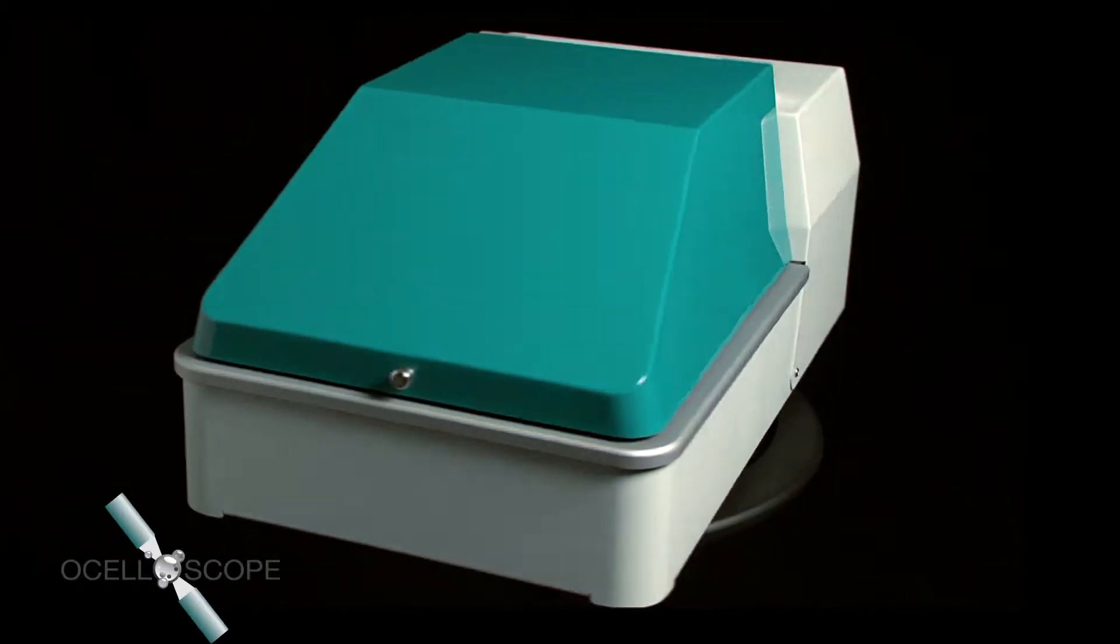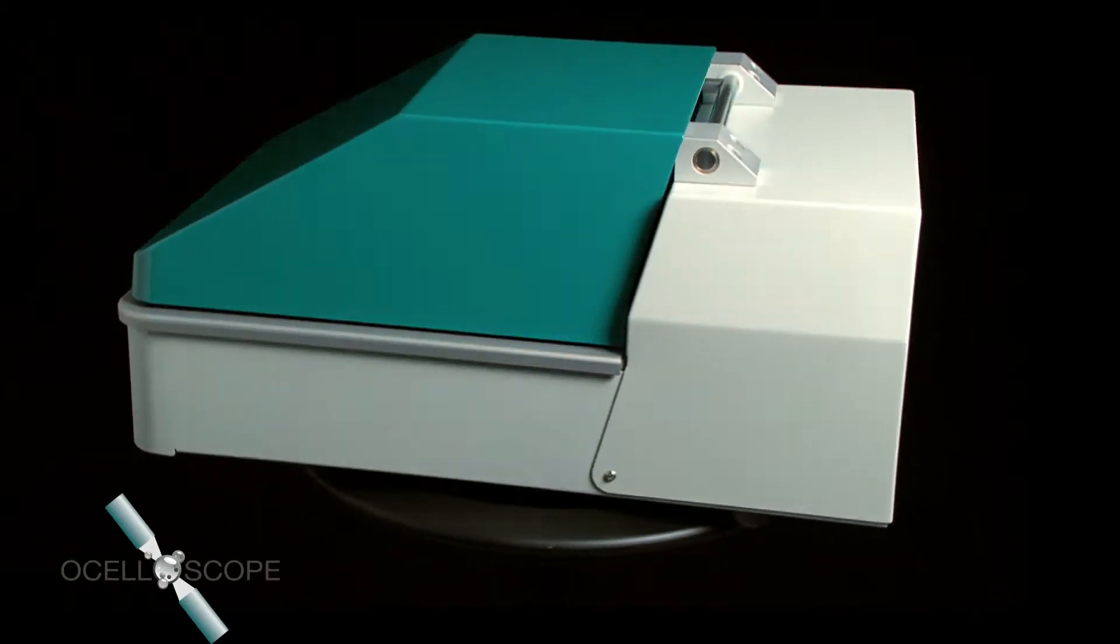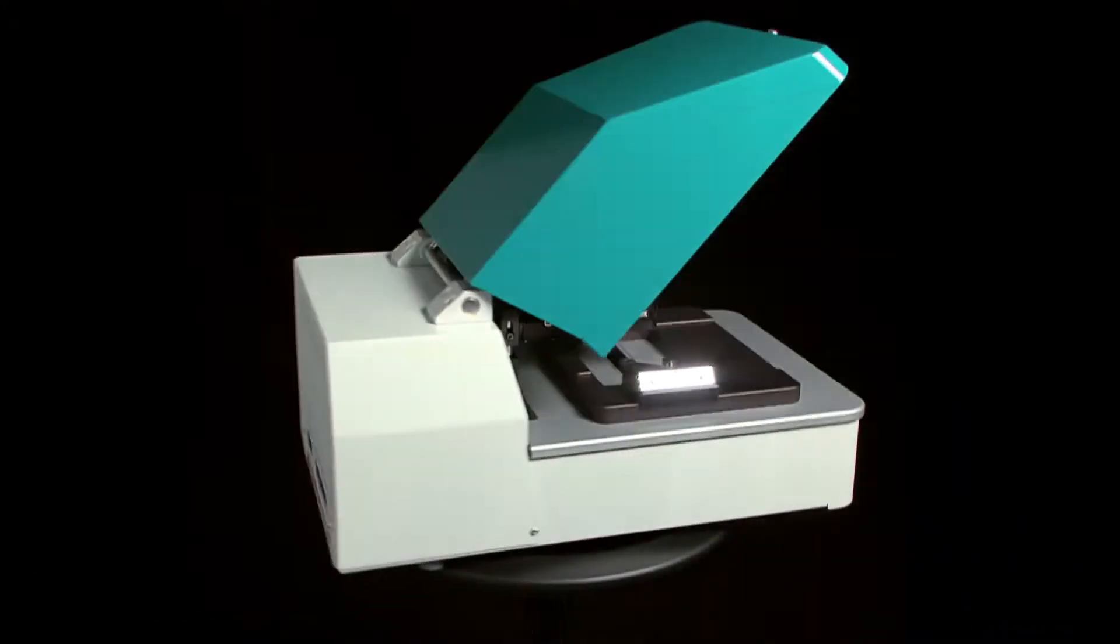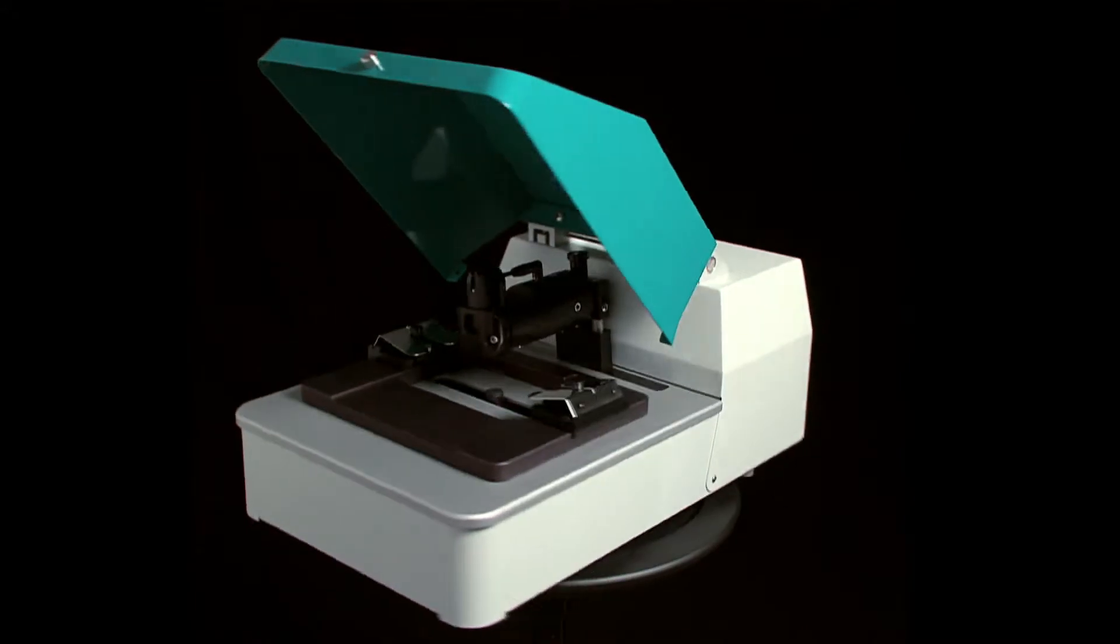Ocelloscope is the newest state-of-the-art instrument for measuring bacterial growth among other things. The results can be read much faster than all other known methods, something that's vital in connection with determining antibiotic resistance.